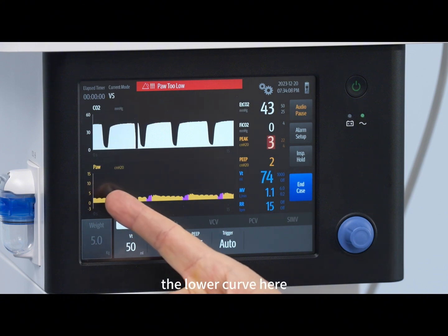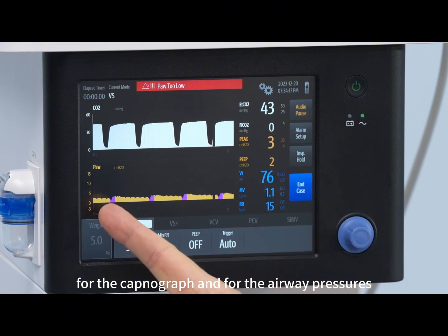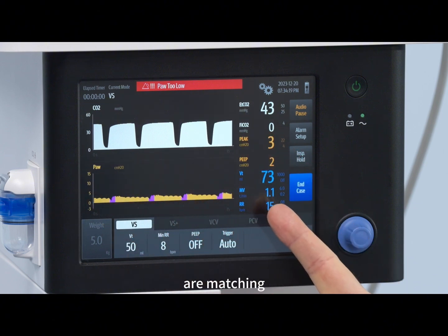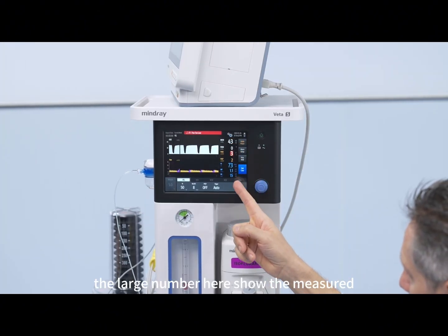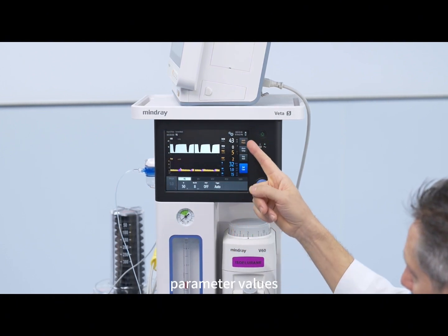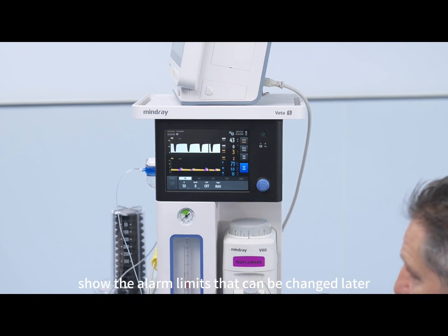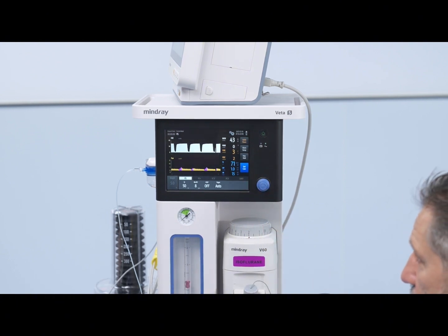The lower curve here shows the airway pressures in centimeters of water over time. The time scales for the Capnograph and for the airway pressures are matching. The large numbers here show the measured parameter values, and the small numbers on the right side show the alarm limits that can be changed later.